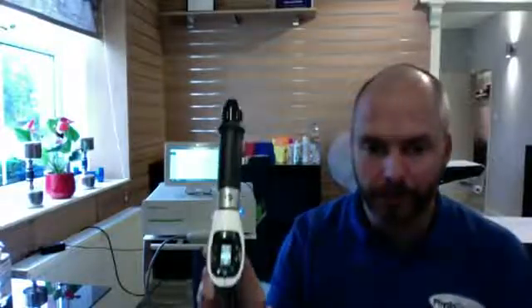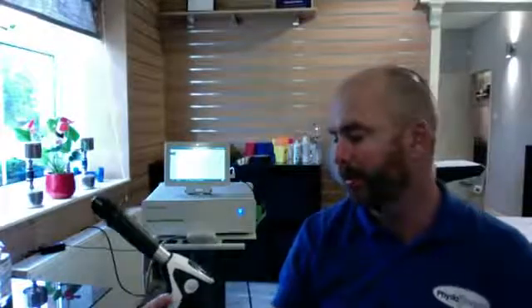Just going to talk to you very quickly on this sunny Friday morning about radial shockwave therapy. So here we've got the radial shockwave applicator. We're on 1.5 bar pressure with a frequency or hertz of 10. We've got 2,000 shocks put on there. Very simple operation.